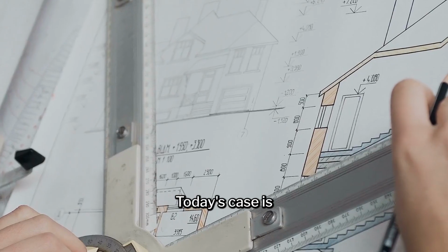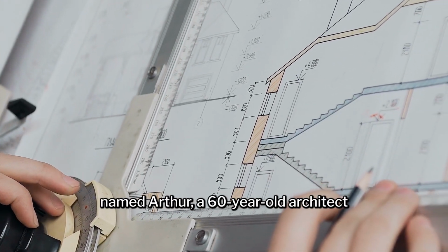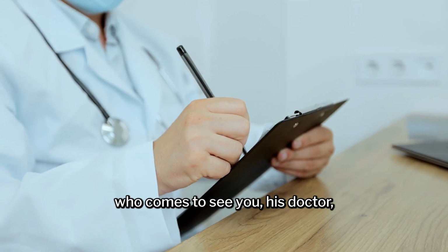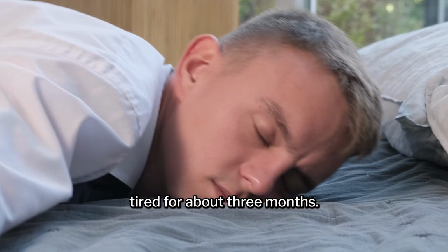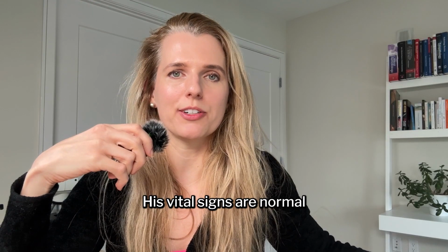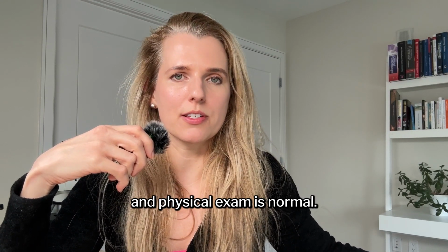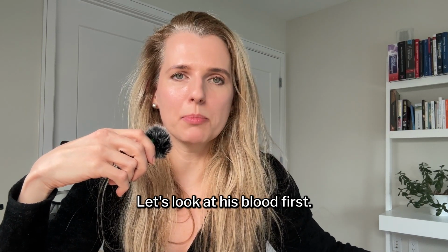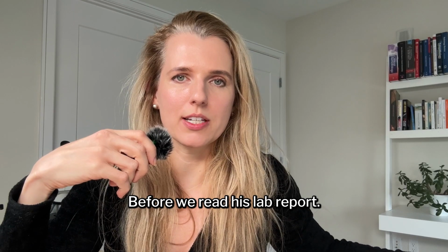Welcome back. Today's case is that of our fictional patient named Arthur, a 60-year-old architect who comes to see you, his doctor, after feeling tired for about 3 months. He has no past medical history, he takes no medications, his vital signs are normal, and physical exam is normal. So you decide to draw some blood. Let's look at his blood first before we read his lab report.